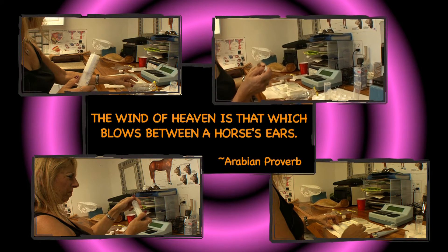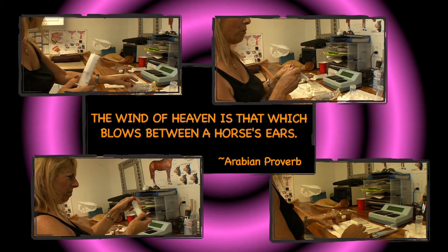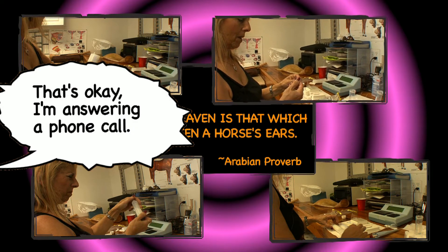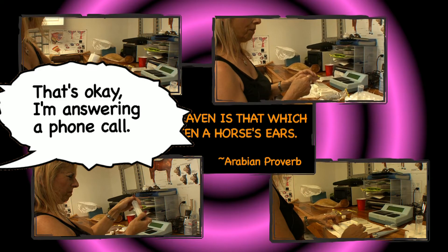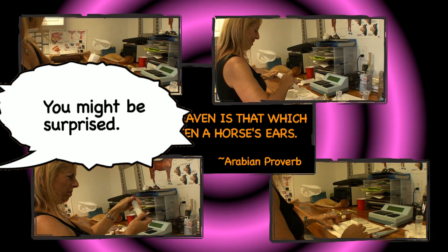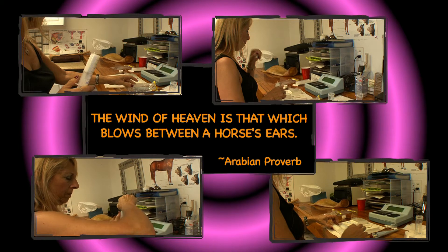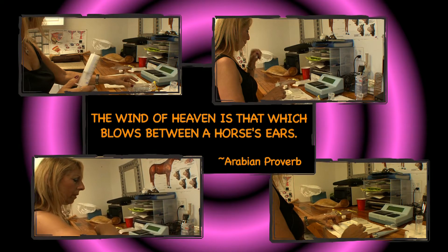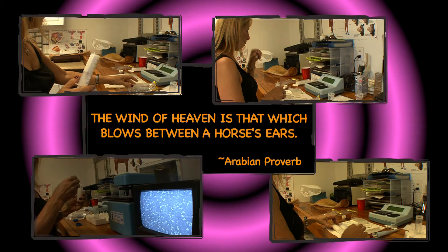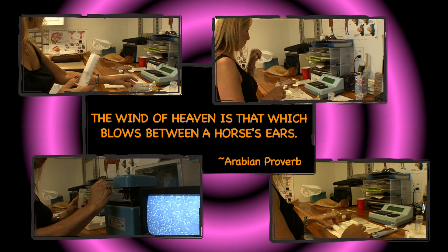Snickers, I don't mean to be rude, but sometimes I get so involved in the lab that it's hard for me to look away from what I'm doing. Also good to get your fingers to work well. Personally, I like to check every sample that I'm going to send out to make sure they look consistent.